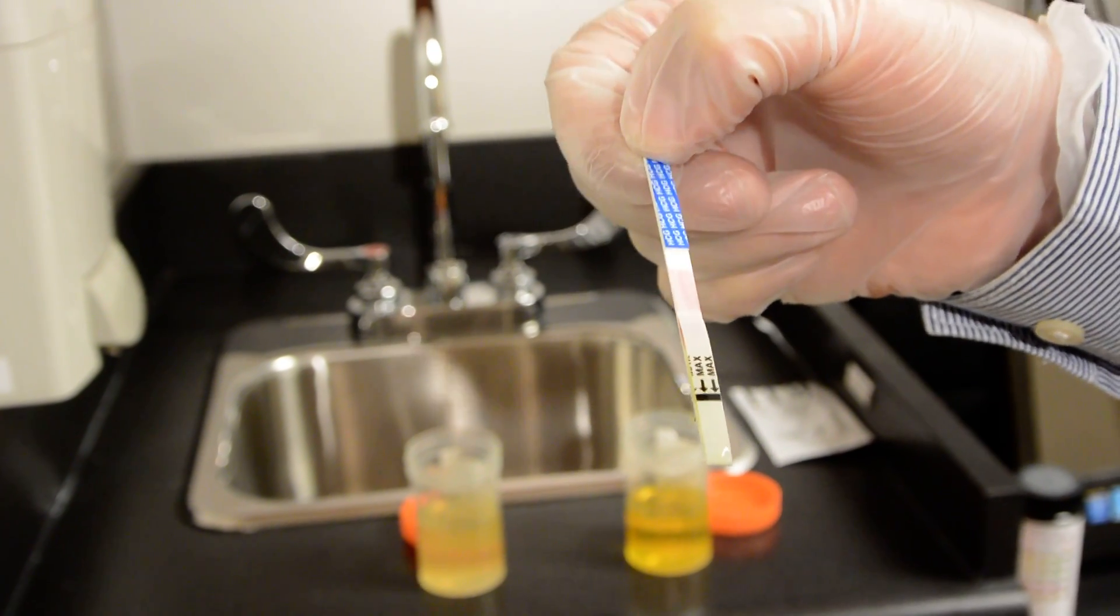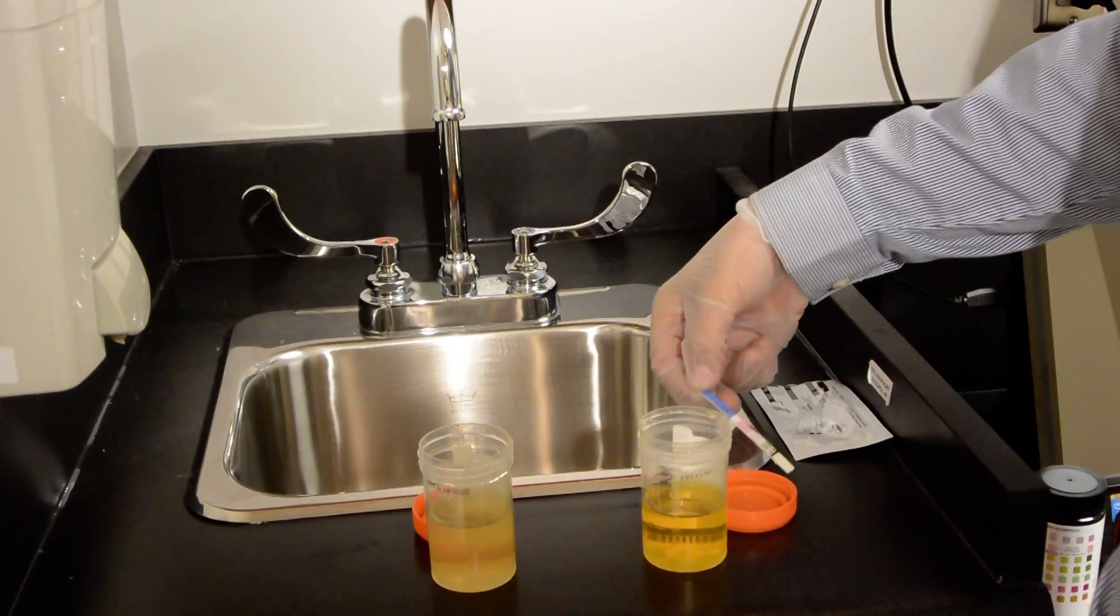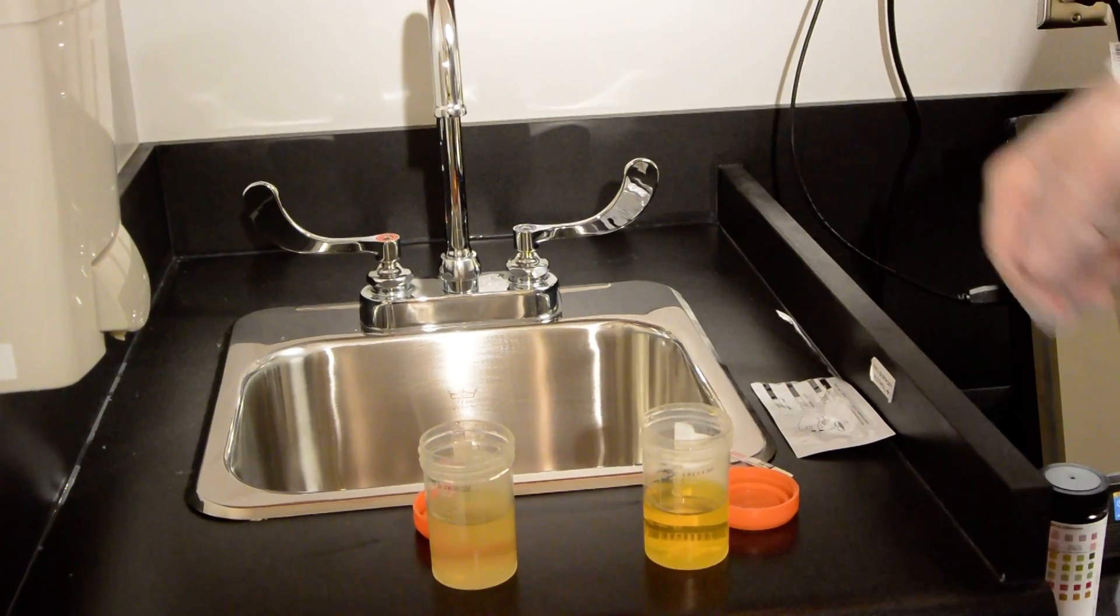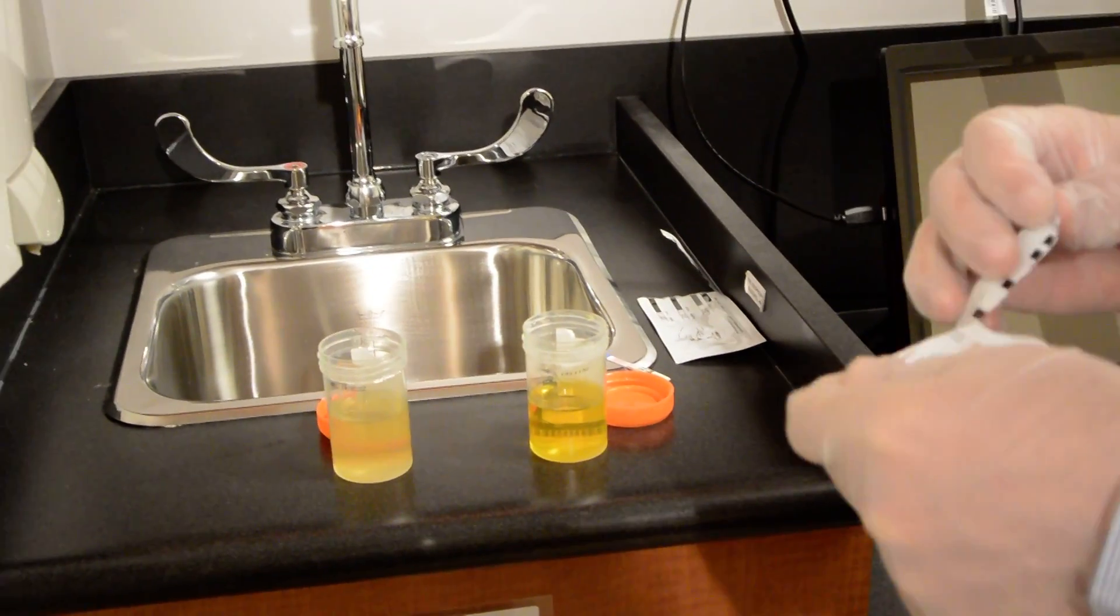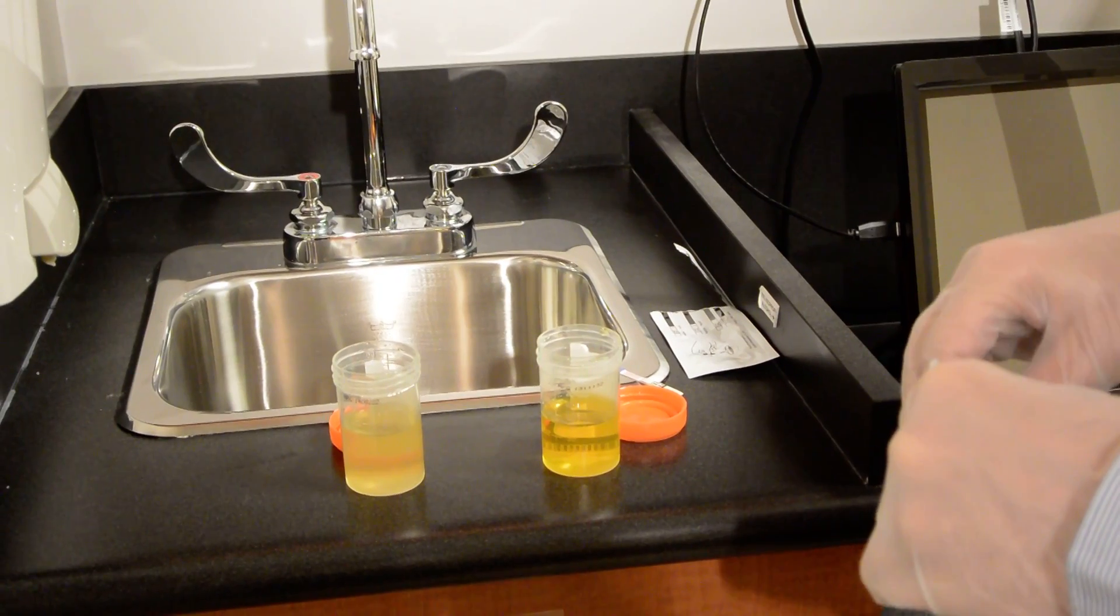It is going to take about a minute or two to get the results. So in the meantime let's take the other sample here which will show the positive sample.